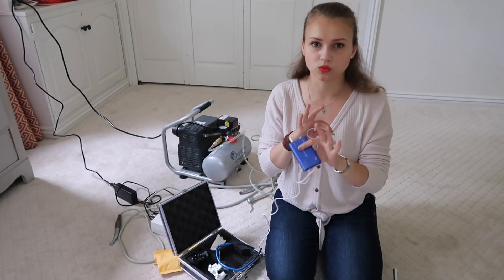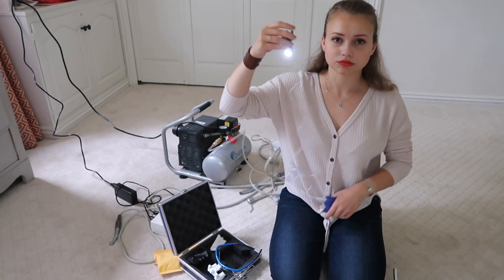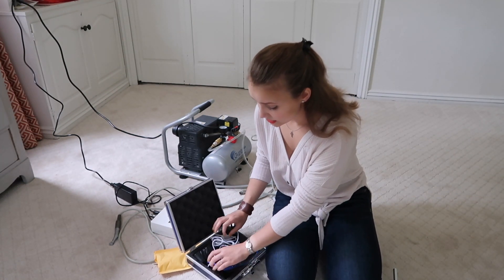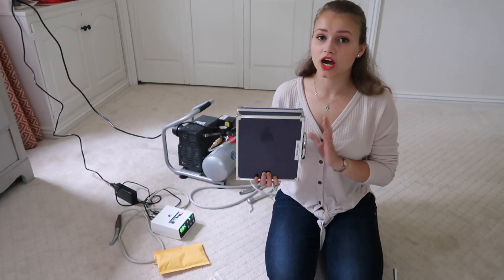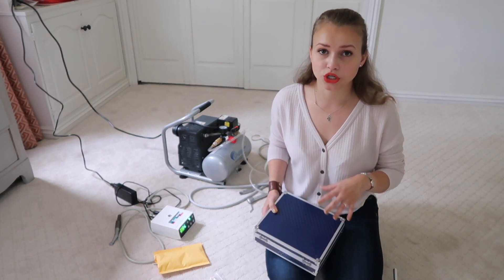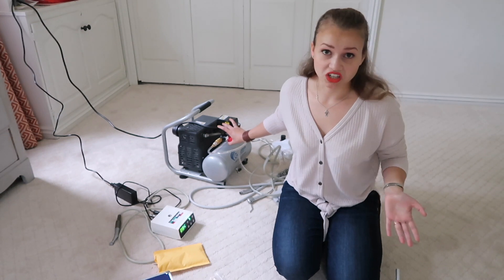The light comes with a small battery pack. It works for about a day if you prep a few hours a day — I didn't recharge it for two or three days. It's a pretty strong light and I never needed anything more than this. I couldn't recommend these loops highly enough. That said, they are not a good replacement for real loops long-term — you can't wear them in dental school practice because the magnification isn't set custom for you and the glass quality isn't great at $40. But for practice, it's a good purchase.